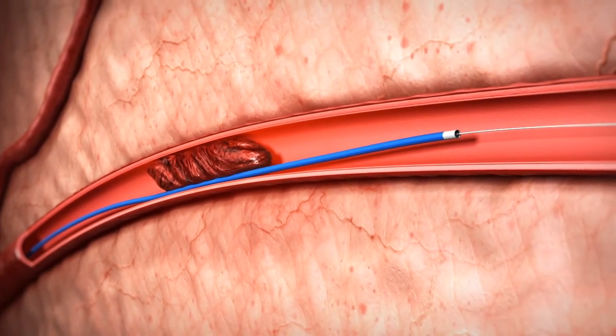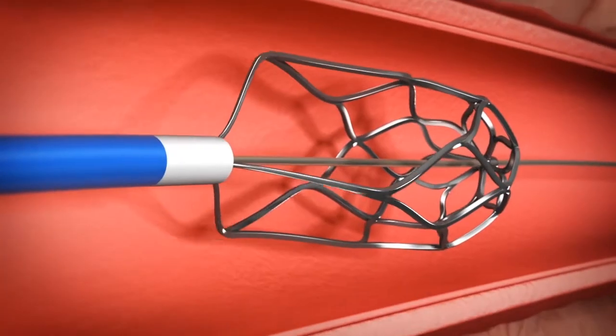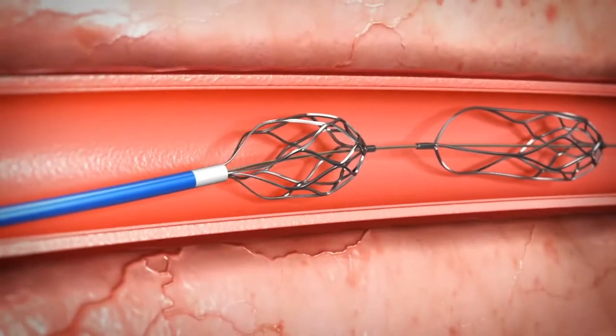The hydrophilic wire is removed and shape memory cages are inserted into the catheter. While withdrawing, the shape memory cages expand.